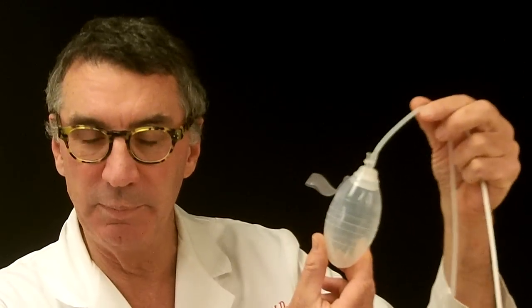The second part is the tubing, which is connected to the third part, which is the bulb. Going back to the drain, this is really of no consequence — you're not going to see this. What you will see is where the tube comes out. This is very, very important to take good care of.